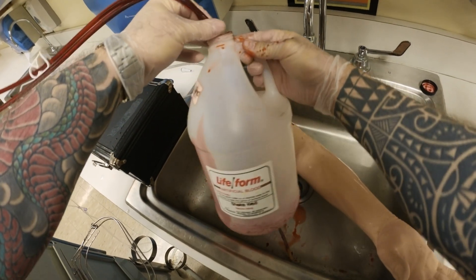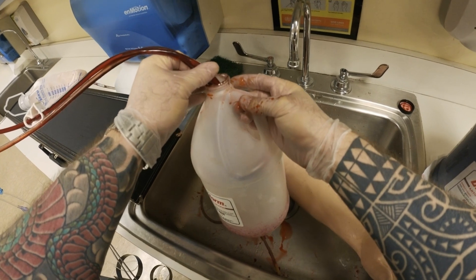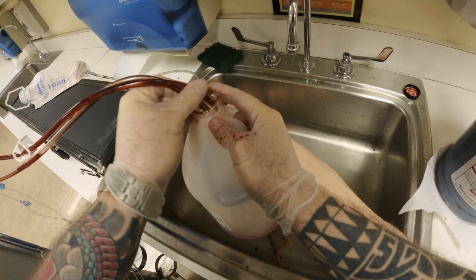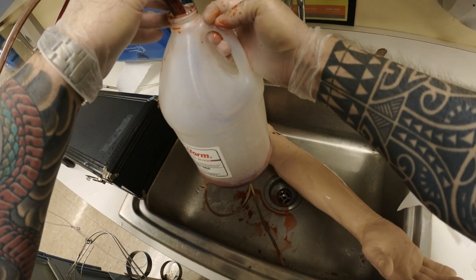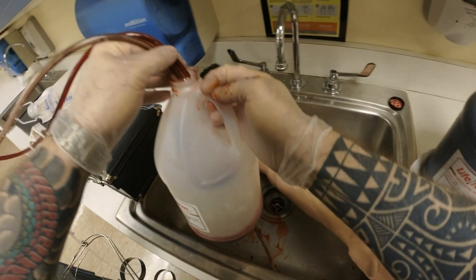This blood I created — when I run the station again next week I can easily reuse it, because all of this will give me the color and consistency I want. I already diluted it, there's no reason to pour this down the drain. Look at the color — it's almost identical to this color.